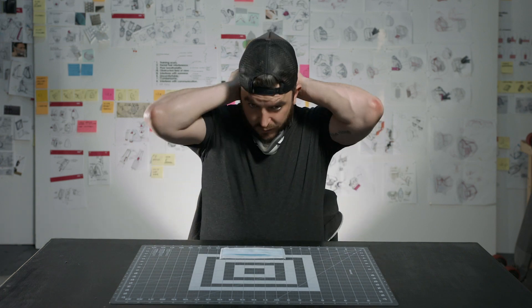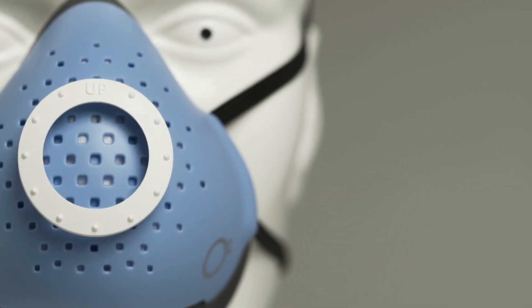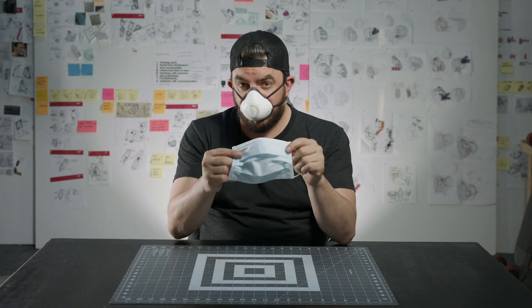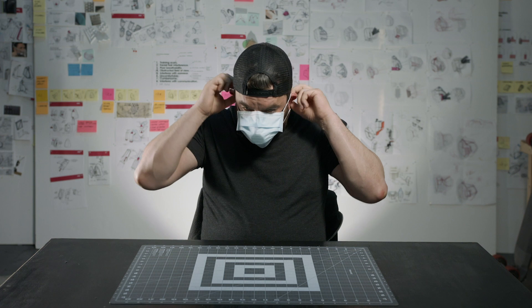You'd put the O2 curve on as normal, around the back of your neck first, then mask loops on. Between patients, you would take a typical procedural mask — three-ply — open it up, and put it on the same way you always would: up over your ears and pulling it down over your chin.